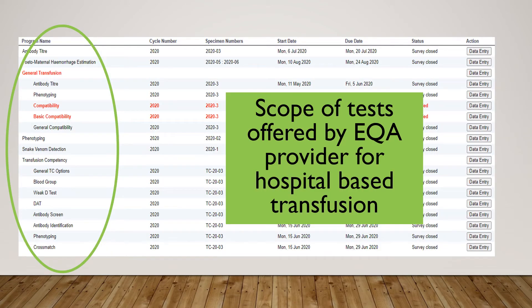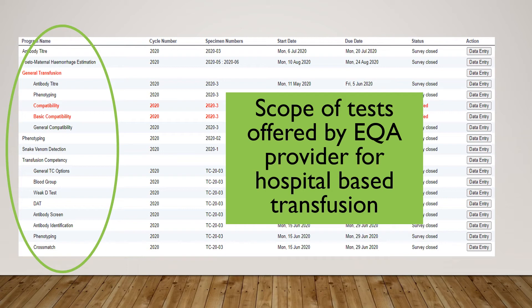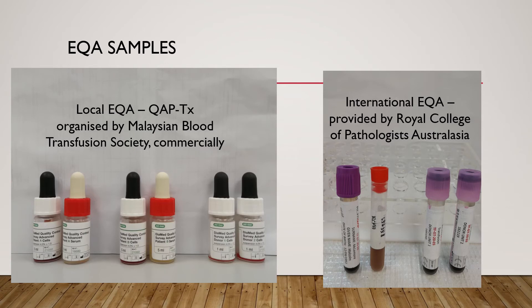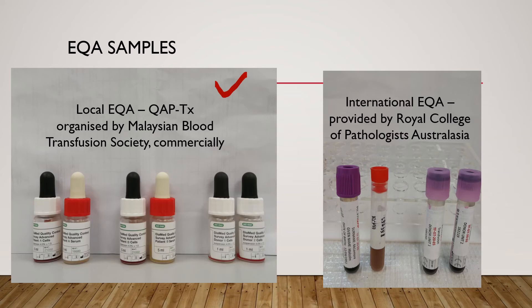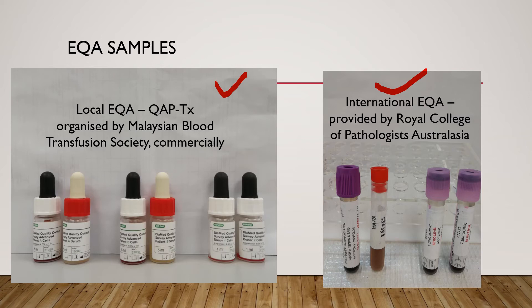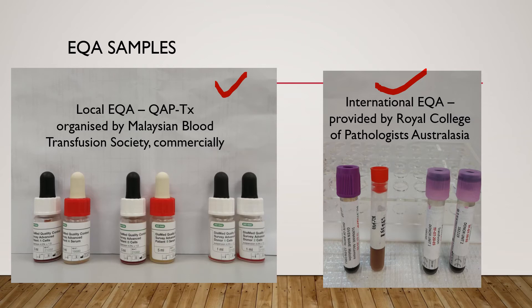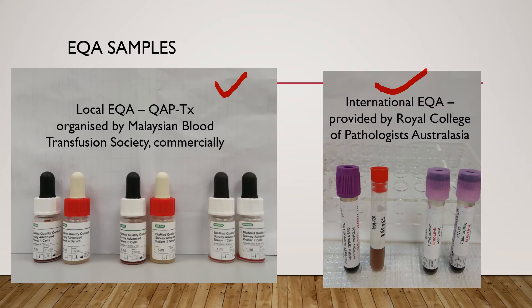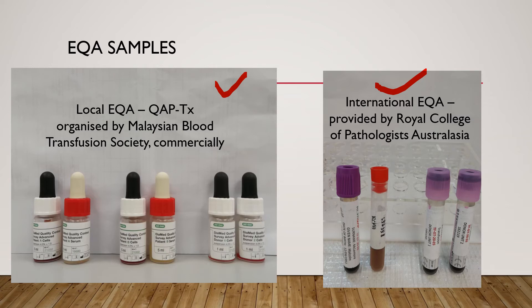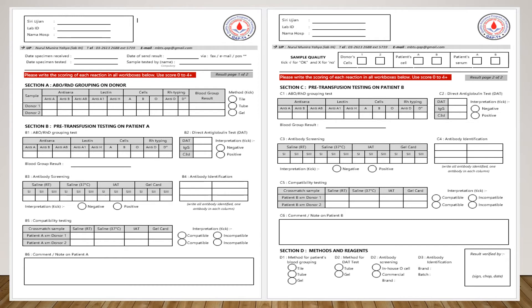These are the scope of tests offered by EQA providers for hospital-based transfusion — this is an example from the RCPA EQA program. The pictures show how EQA samples look like. On your left are EQA samples from QAPTX, and on the right are EQA samples from RCPA. Our local EQA program utilizes commercially prepared EQA samples, but the RCPA samples are manufactured and labeled exactly like patient samples. The QAPTX samples remain unchanged from survey to survey — two patient samples that need to be cross-matched with two donors' blood — while RCPA EQA samples vary from survey to survey according to type of case.